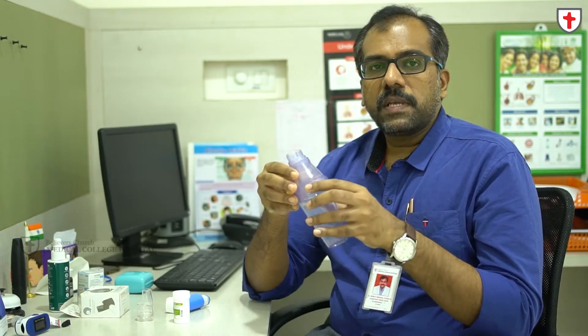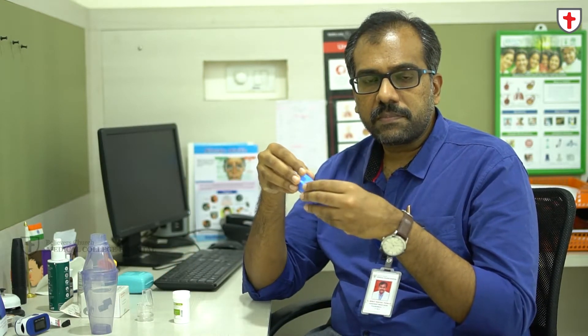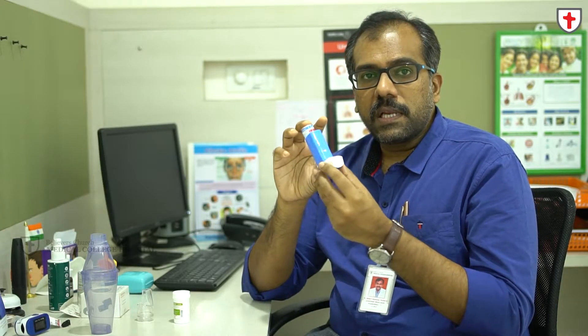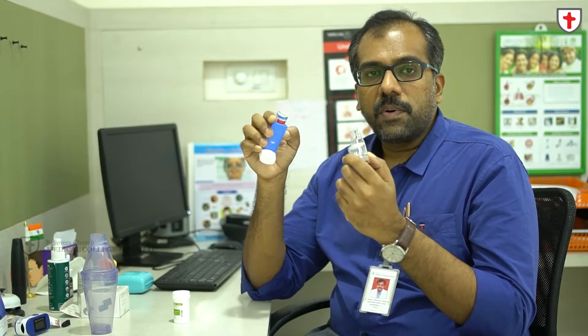Hello, today we will be demonstrating how to take an inhaler, the medicine which is supposed to go inside your lungs. There are a lot of medications available for lung health, and one of the most common things we use is inhalers. Inhalers come in many forms: there are nebulizations, meter dose inhalers or pressurized meter dose inhalers known as MDI, and dry powder inhalers or DPI. I will be demonstrating what is an MDI and what is a DPI.